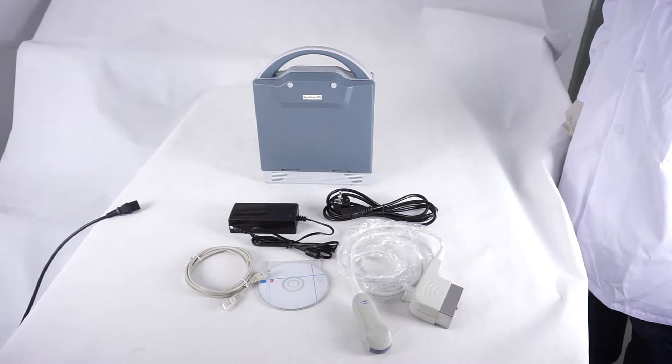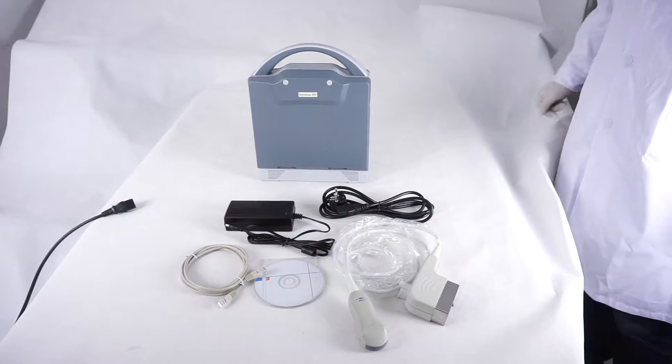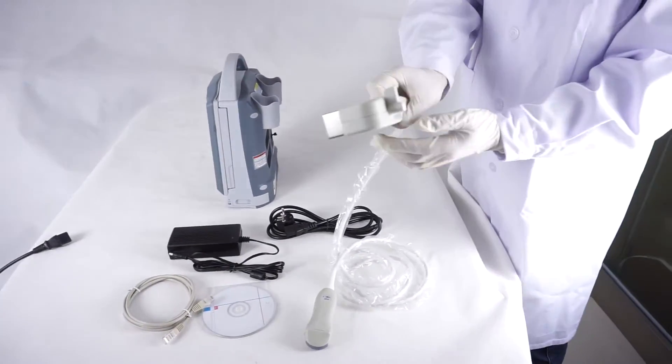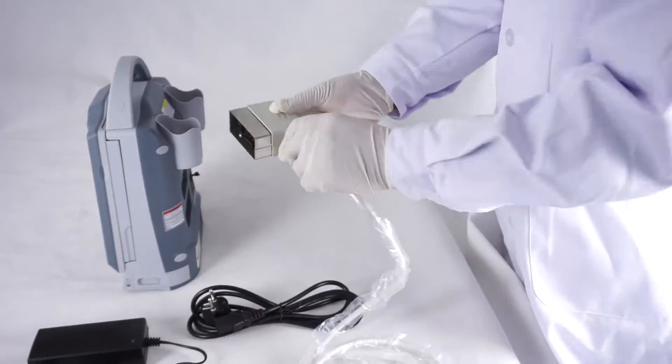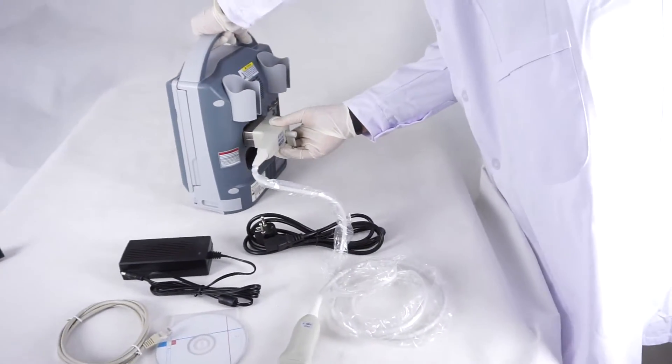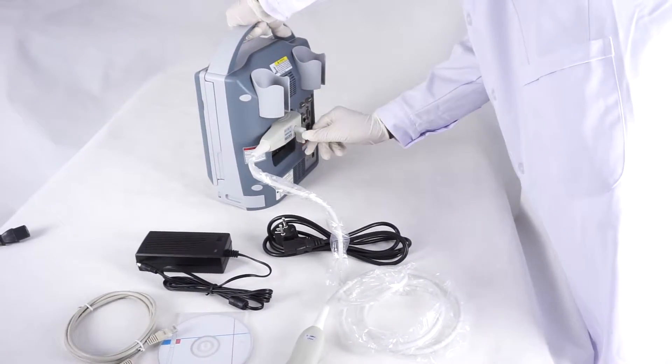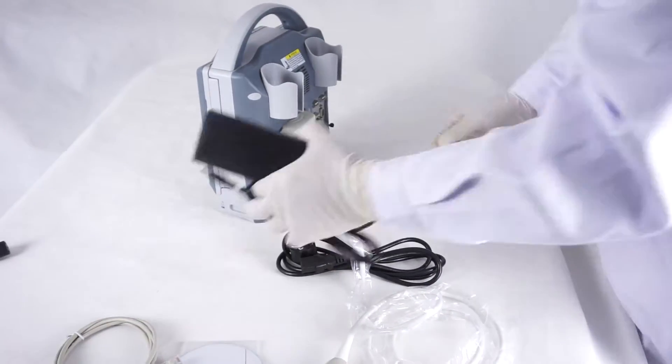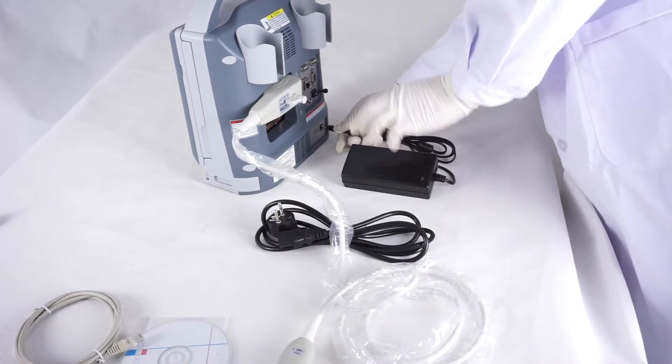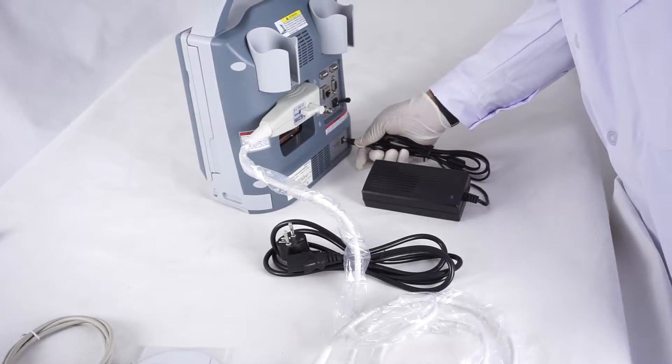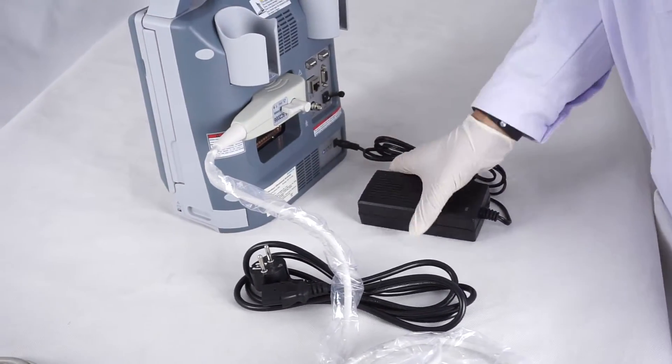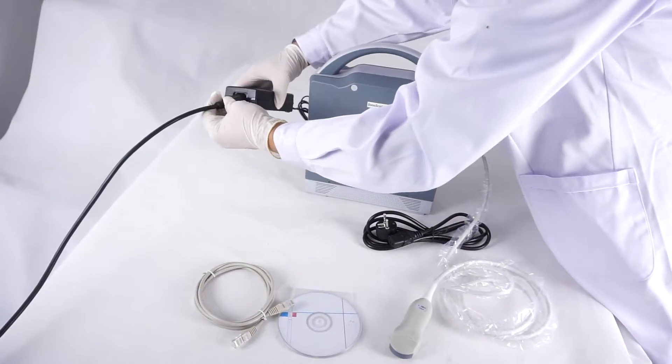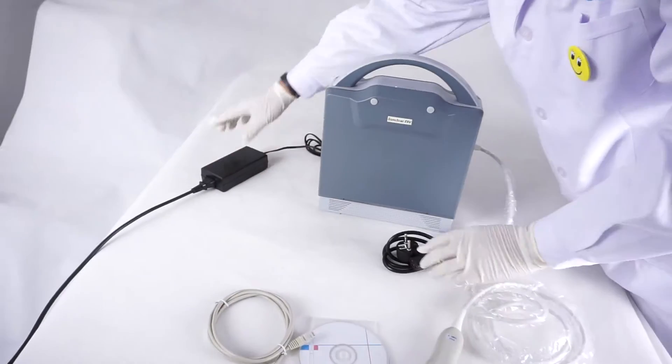Let's connect the power supply and connect the probe before we open the machine. It's a 6.5 multi-frequency micro-convex probe. The frequency is from 6.0 to 6.5, 7.5 and 9.0.